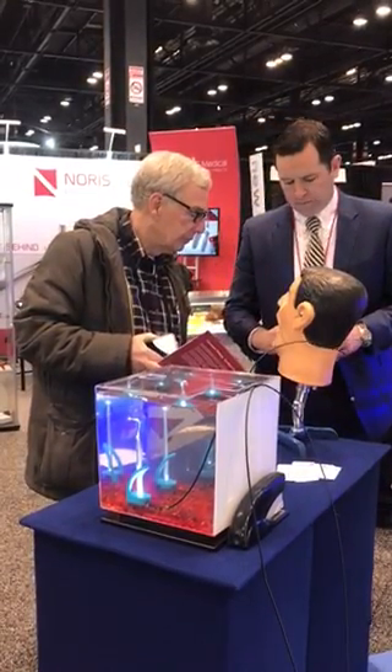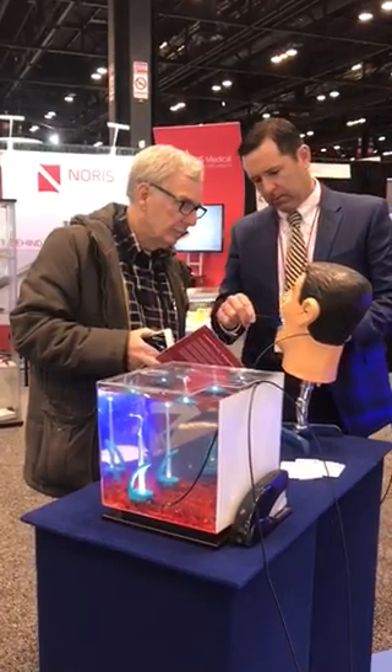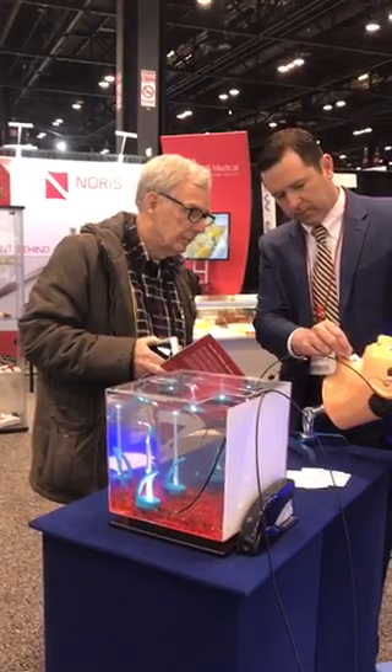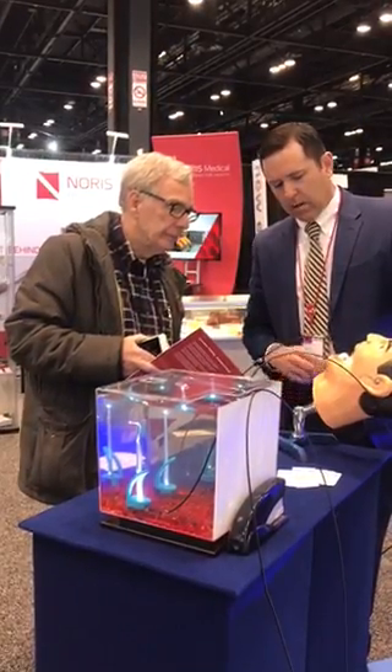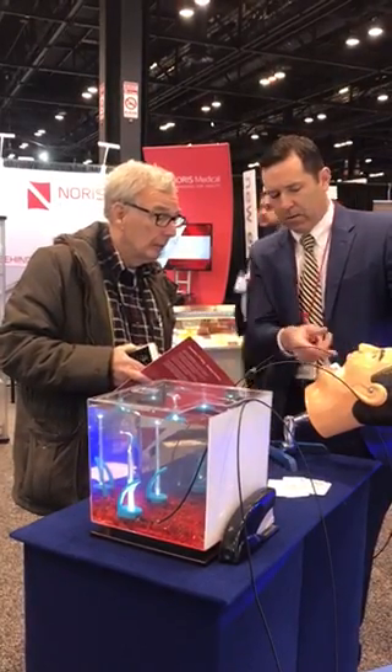You can flip it. So what you do is, now you've got that corner. We have a left and a right side, depending on if you put it up here or at the bottom.